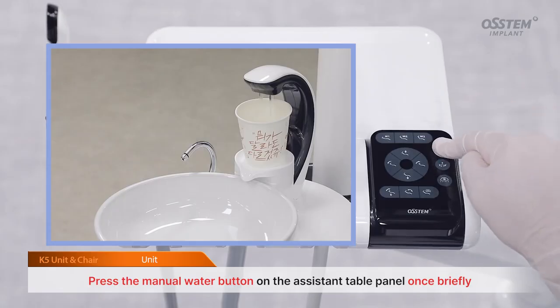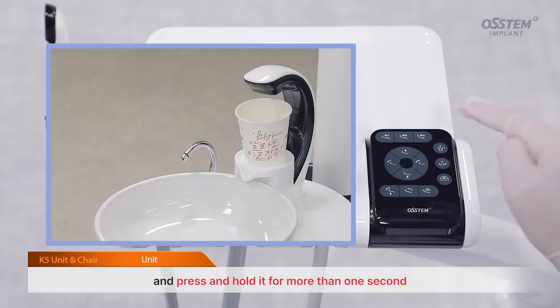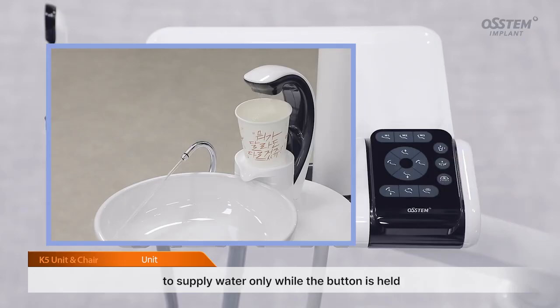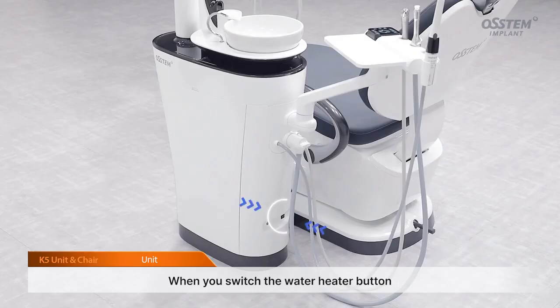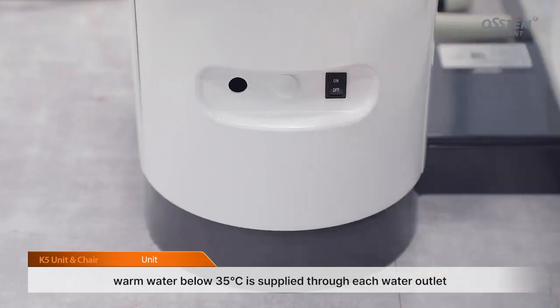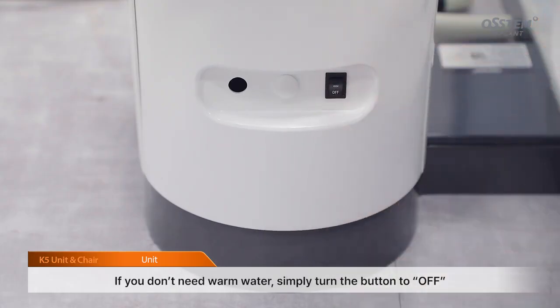Press the manual water button on the assistant table panel once briefly to supply the same amount of water as the automatic setting, and press and hold it for more than 1 second to supply water only while the button is held. You can adjust the amount of water for the cup and the spittoon cleaning time through the doctor table LCD settings screen. When you switch the water heater button located at the bottom of the unit to on, warm water below 35 degrees Celsius is supplied through each water outlet. If you don't need warm water, simply turn the button to off.